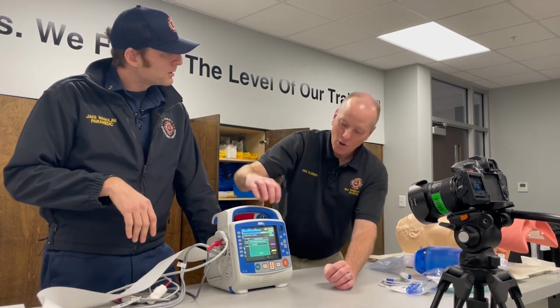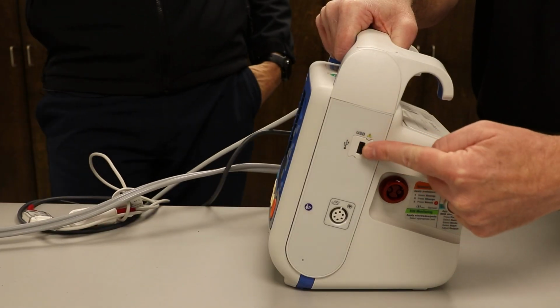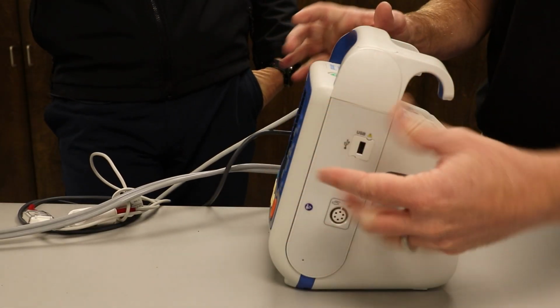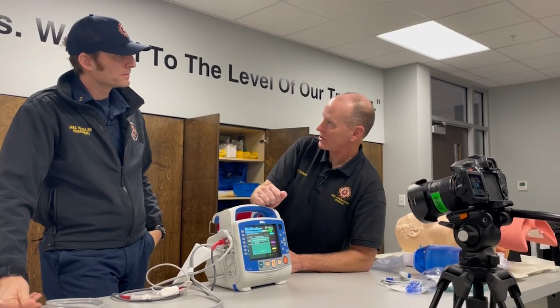right? And normally what you guys are going to see is in your pack, you're going to actually have a modem hooked up. There will be, in your little pouches, there'll actually be a black piece hooked up here. And when you go to transmit, it will actually say, where do you want to do it?